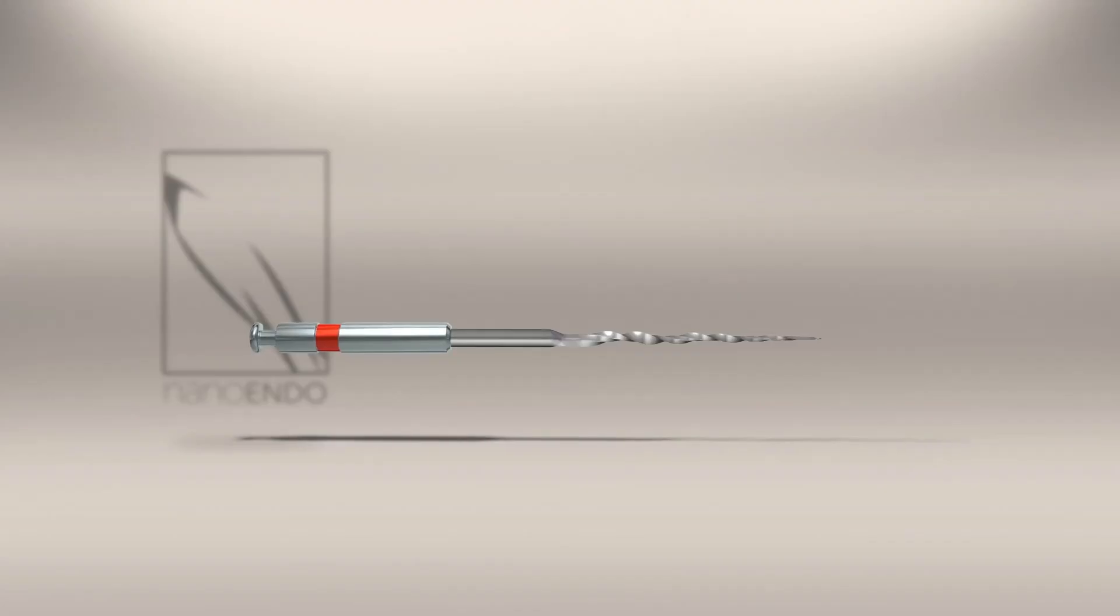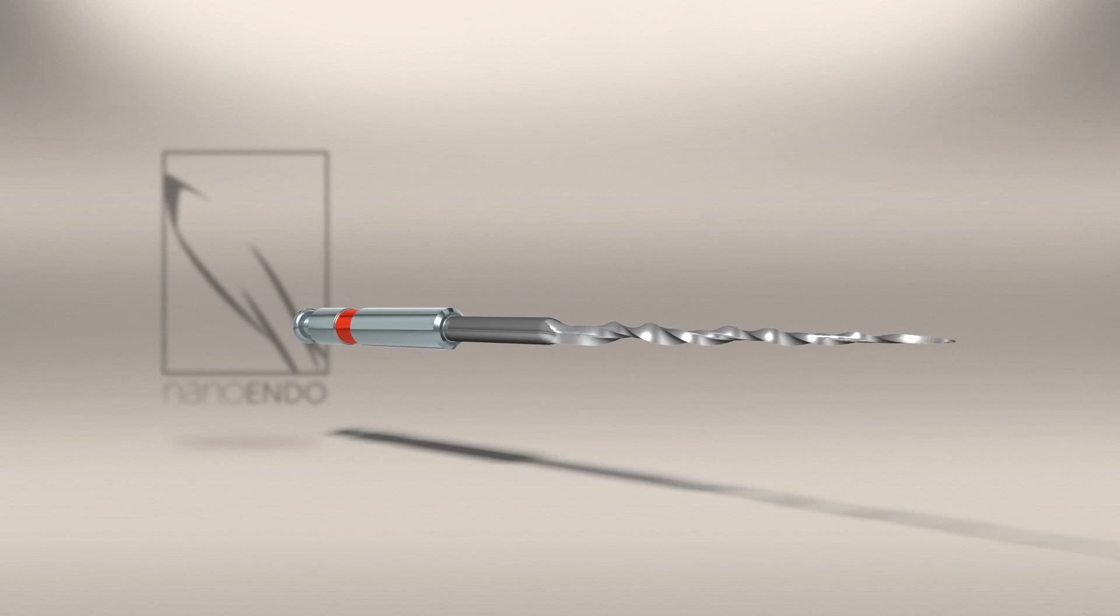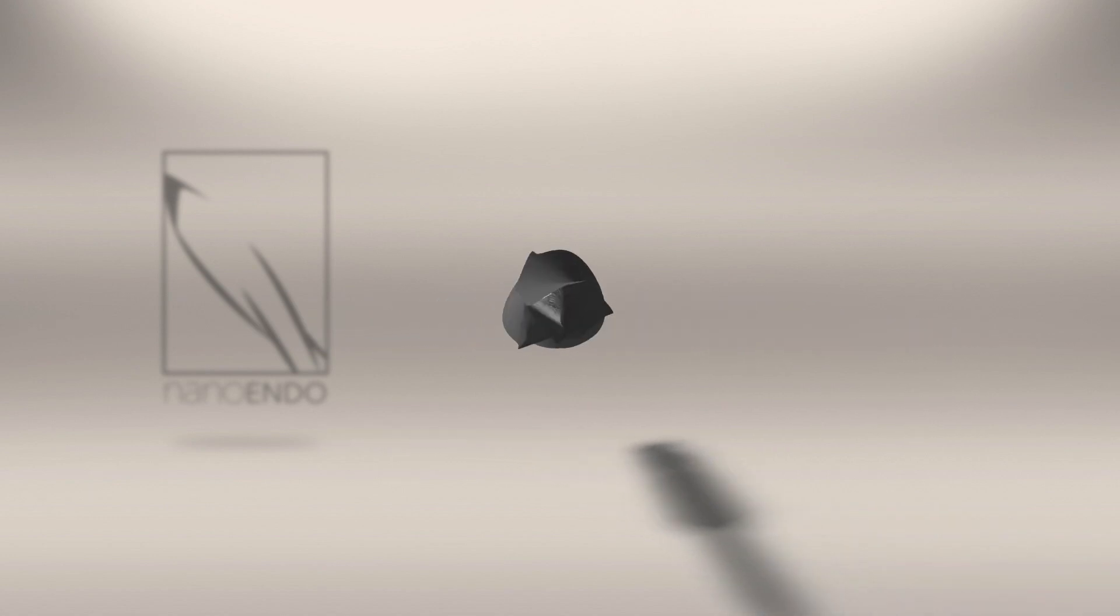To explore the features of this new file, let's begin as we do with our design process, at the tip.